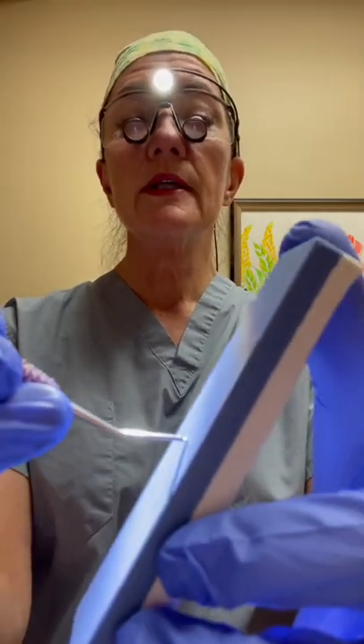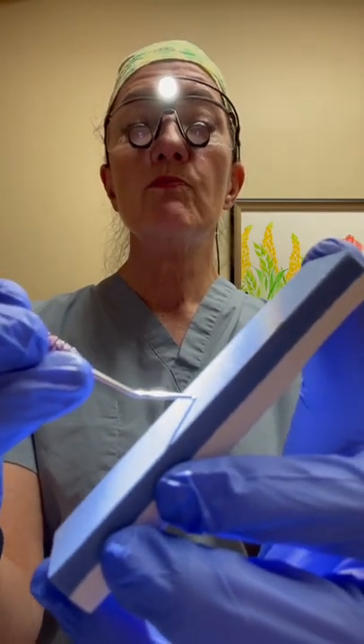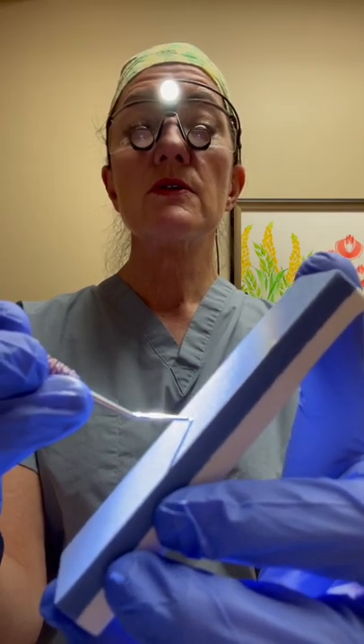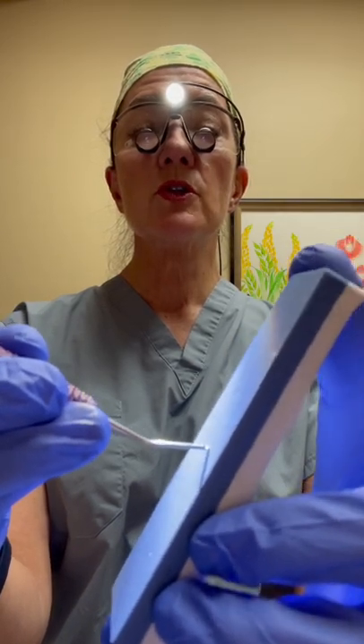My stone is right on the cutting edge. If I go too far like this, it's opened up and now my stone is not touching the cutting edge. So what I'm going to do is slowly close it till I see it meet that cutting edge.